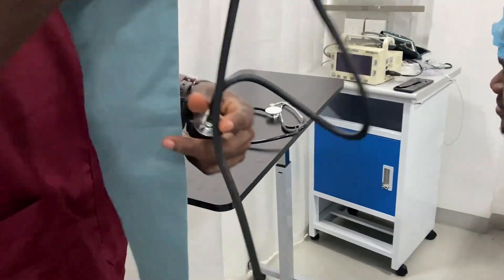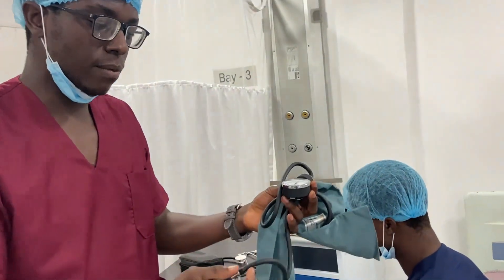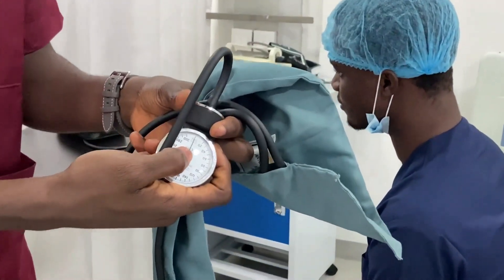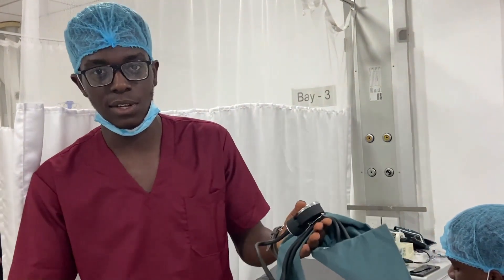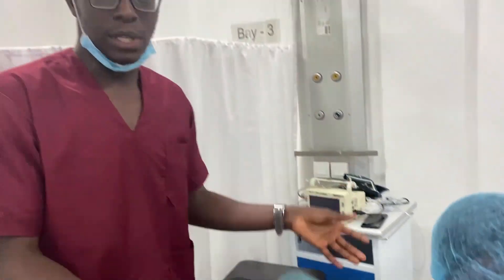Here you can see the inflator, the cuff, and the gauge — which goes up to 300. The SI unit for blood pressure is mmHg, which means millimeter mercury. The normal systolic blood pressure is 100 to 120 mmHg, and the normal diastolic blood pressure is 60 to 80 mmHg. Make sure to remember that.